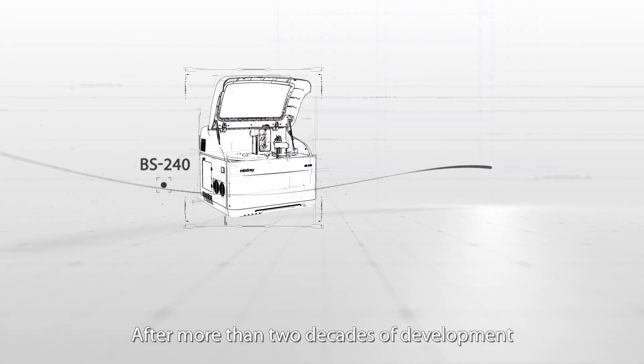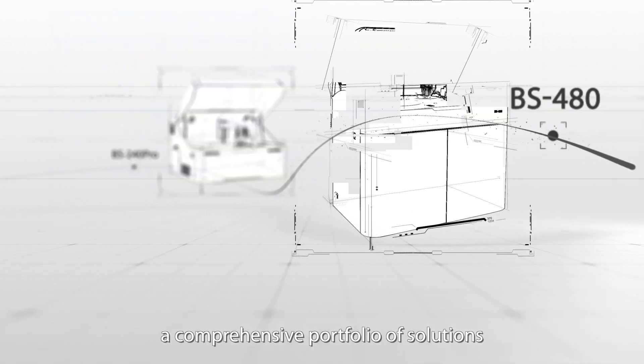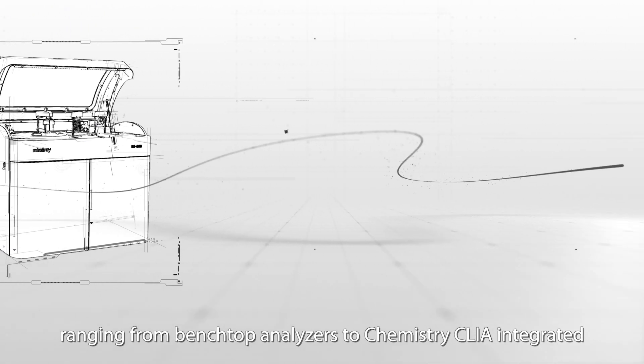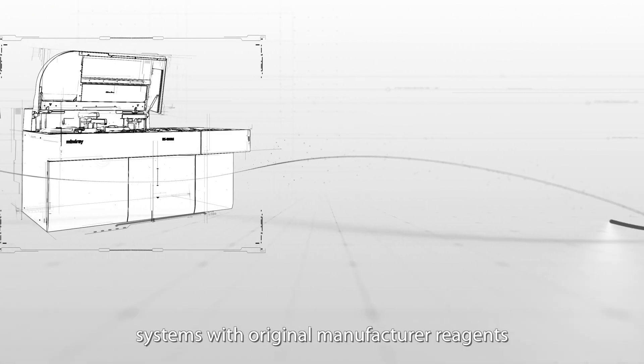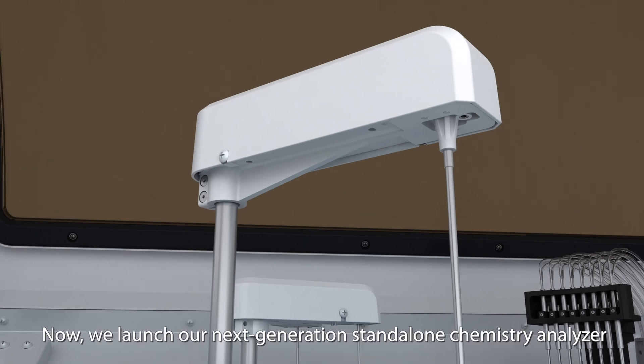After more than two decades of development, MindRay Clinical Chemistry has established a comprehensive portfolio of solutions, ranging from benchtop analyzers to chemistry CLIA integrated systems, with original manufacturer reagents, calibrators, and controls, fulfilling a wide range of laboratory needs.